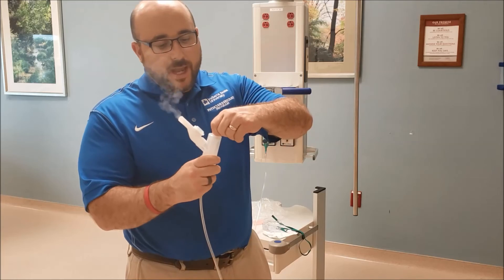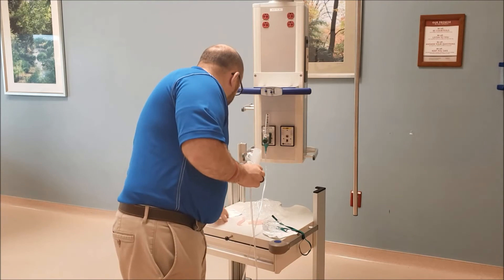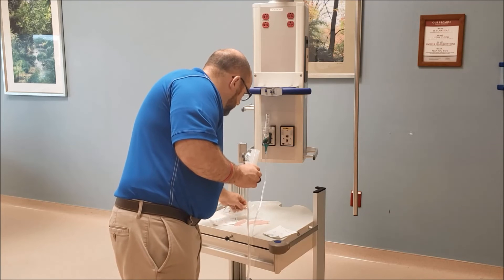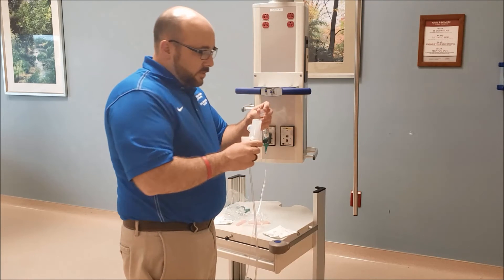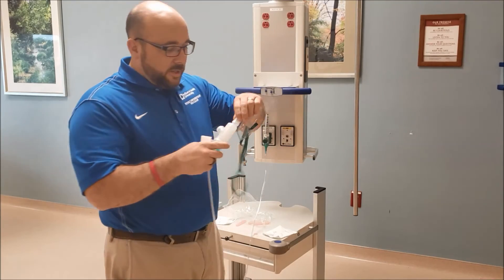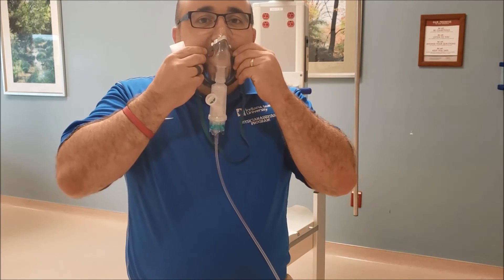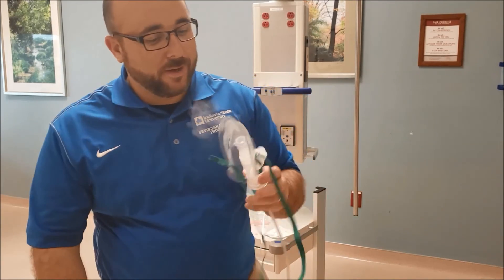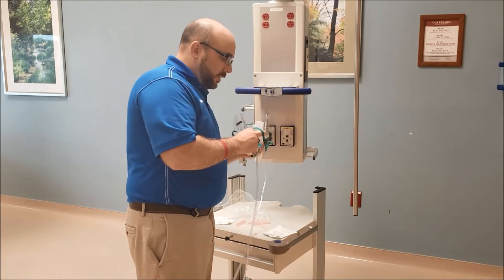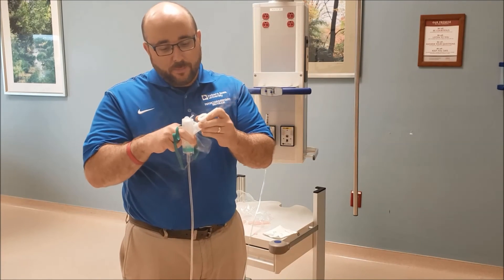You can put this piece on and attach it to the mask. I know how I feel about masks — I'm not a big fan — but in case they want to do it with a mask, it does have that adapter. But try to get them to do the mouthpiece, because it makes them take an active role in doing their nebulizer treatment.